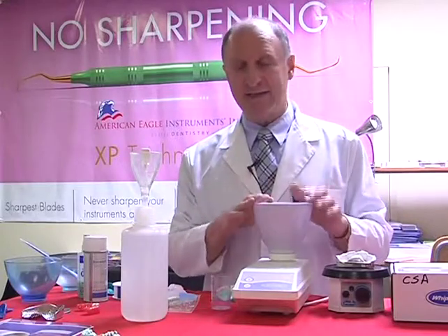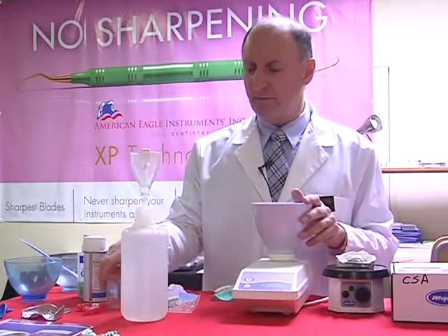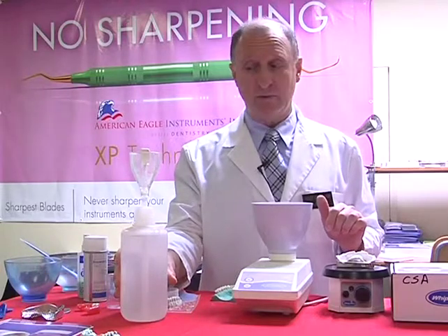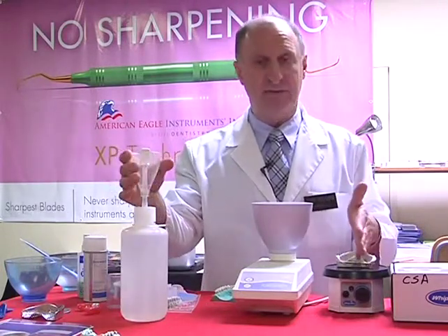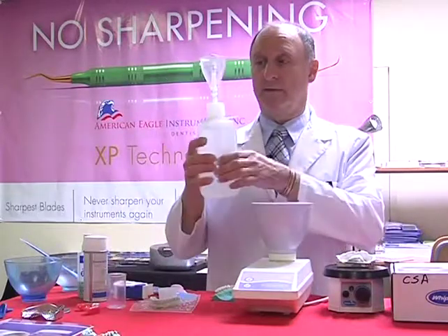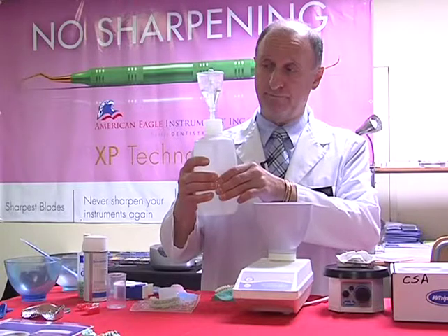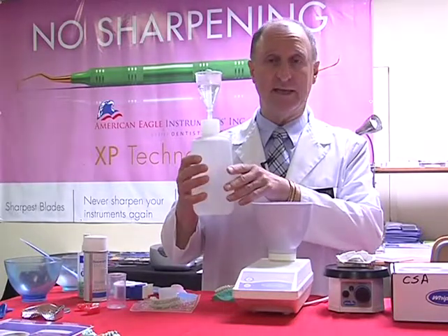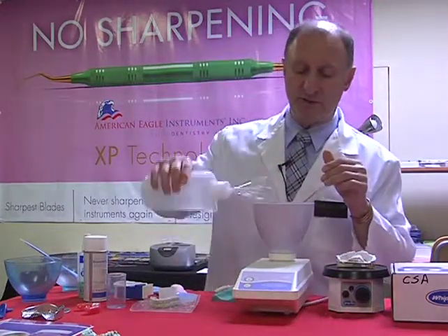So let's go ahead and do the mix of stone. Second level of water for our regular impressions. If we've got a large impression, we want to change it to 3 scoops, or a single scoop if we've got a half impression. So I'm just now measuring my water. Once it's up to the white cap, just release, let go. And now put our water into the bowl.